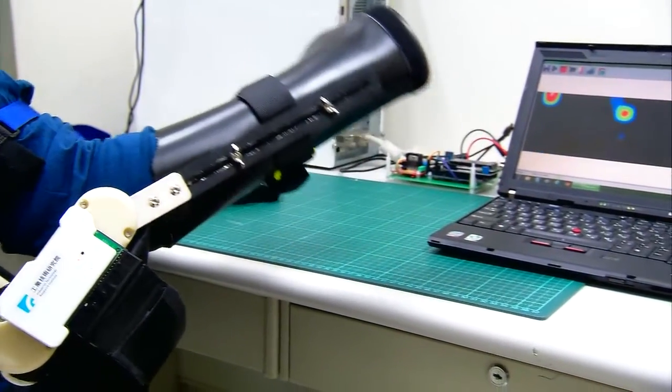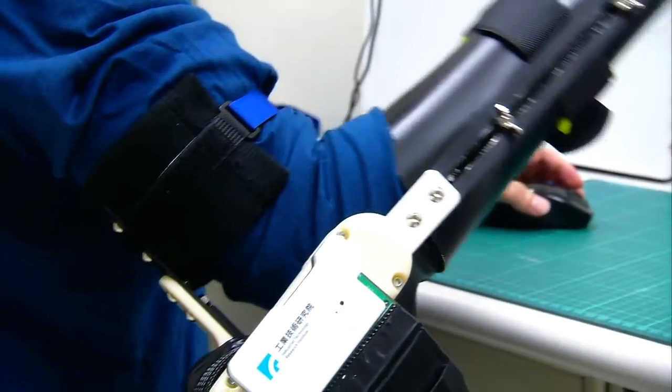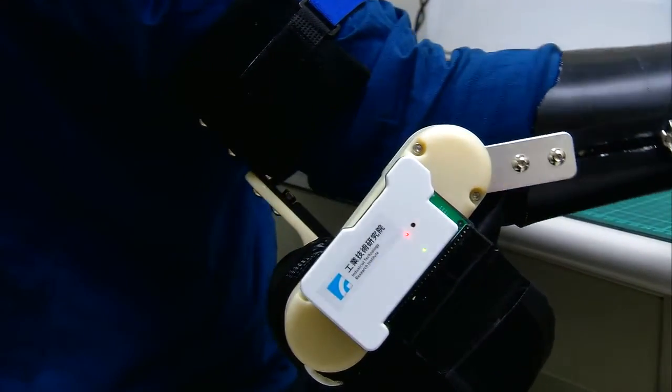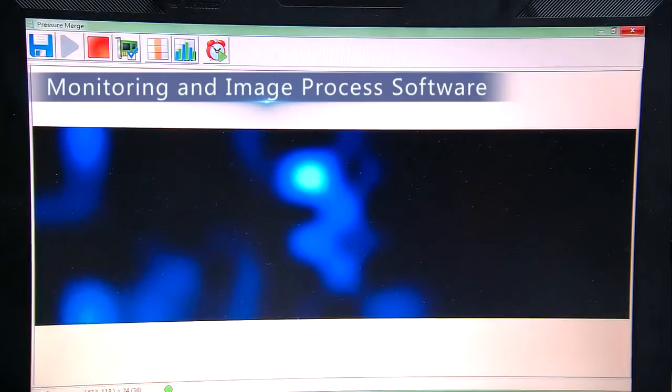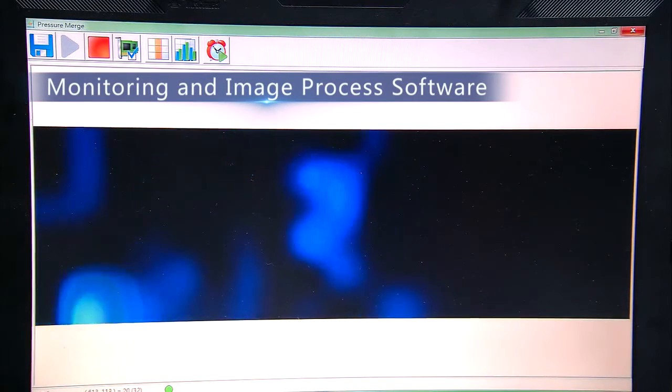HSTS helps interpret the wearer's movements through physical contact. The deformation of muscle in action results in pressure variations between the orthosis and the wearer's skin, which reflects their intention to move. The technology is aimed at solving the issue of control demand for artificial limbs and machines.